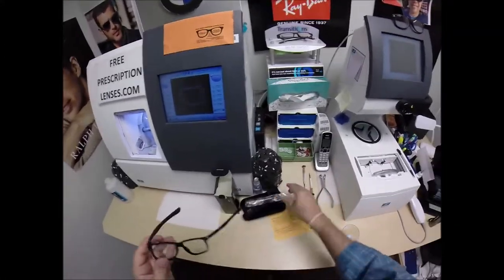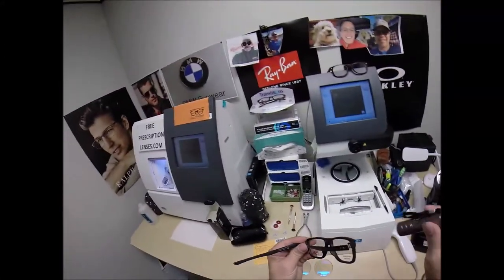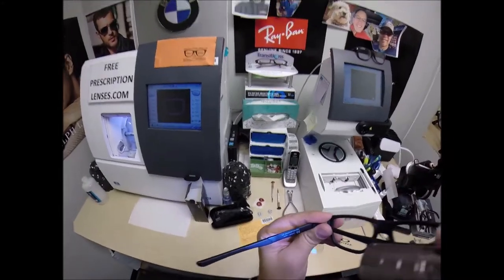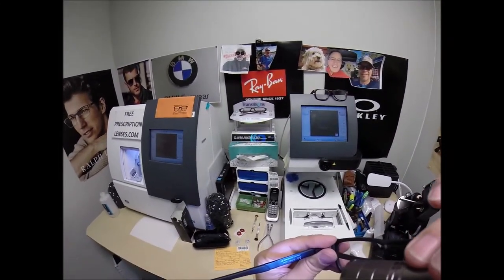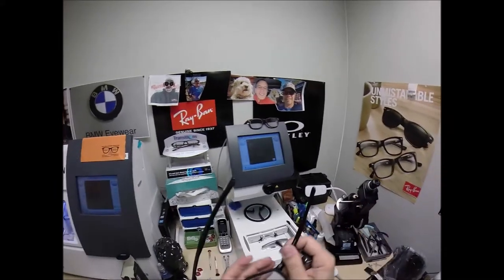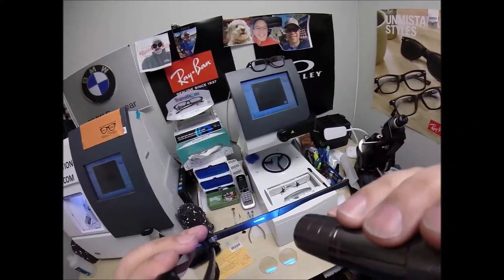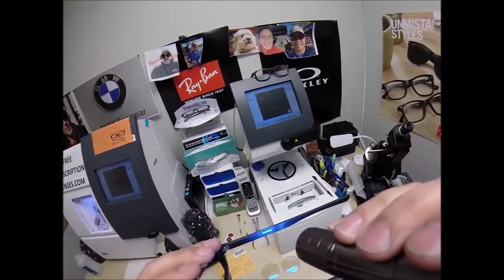I'm going to put that on there when I ship to you. But this is the Oakley 8123, the Sunder, color 01 satin black in the 53 eye size. And of course it says the name on the right temple, Sunder.